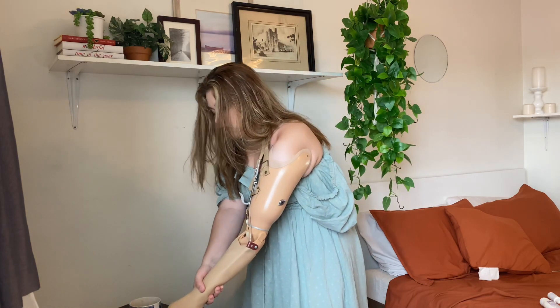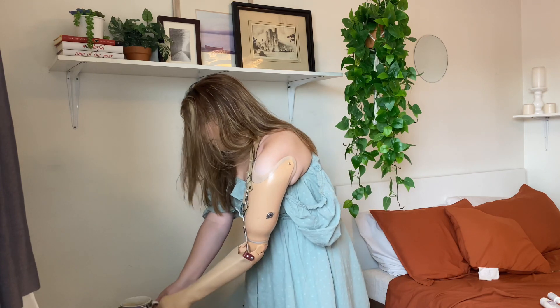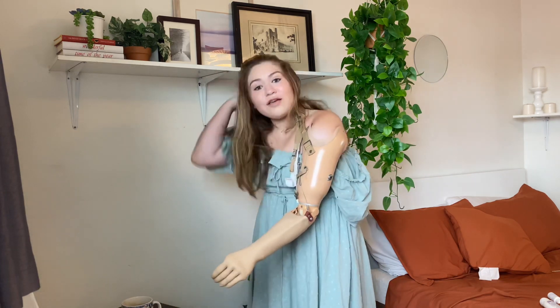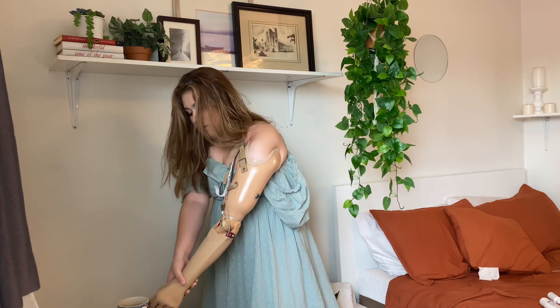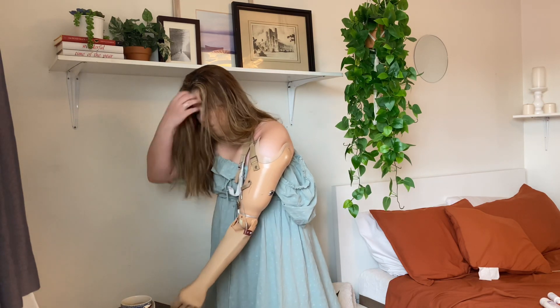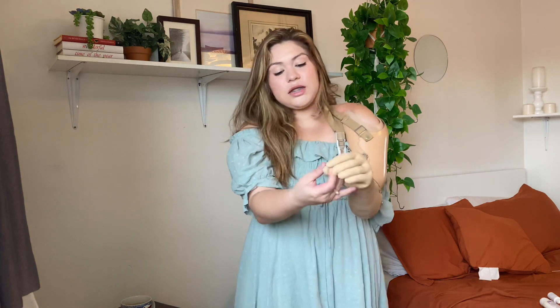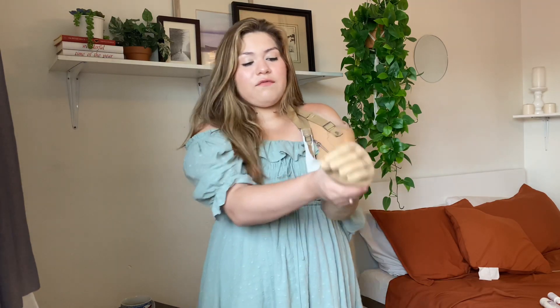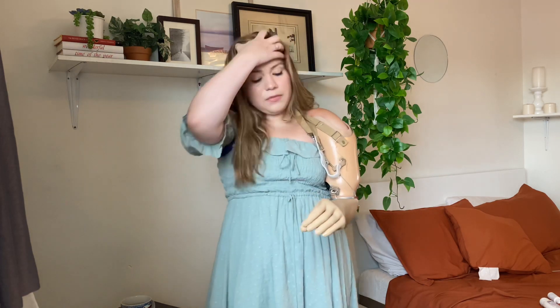If I want to open and close around this cup — let me see if it works because I haven't actually used it with the cup. If I open and close, it won't really hold onto the cup because the grip will let go — it's not strong enough. I can't put something really heavy on it or it's going to go down even if it's locked. That's the only thing with it.